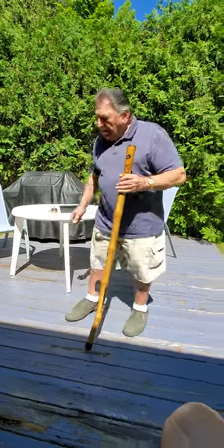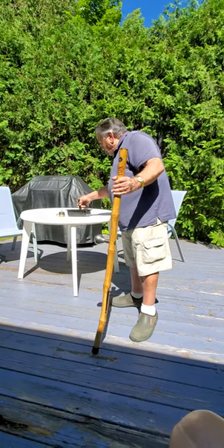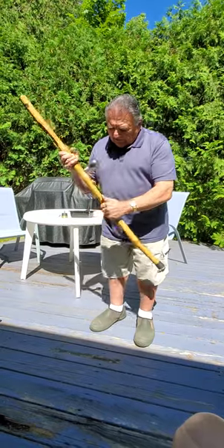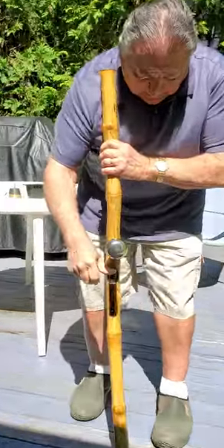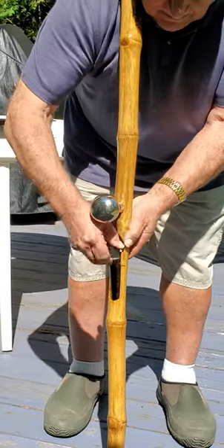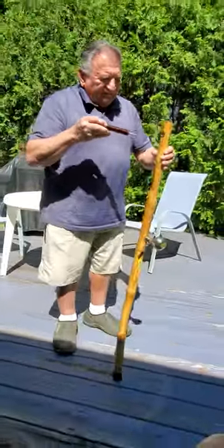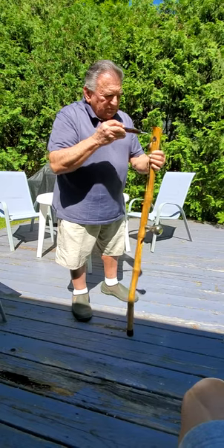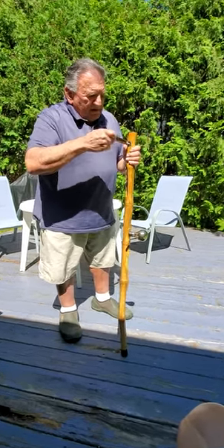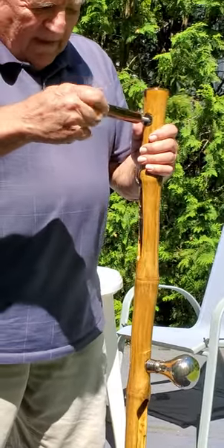And then for the next part, we take this piece that's in here, right here. And the cane that it's been carrying around — that comes out and that goes in right here, like so, up on top. And that's where your armpit is going to be resting on that piece.